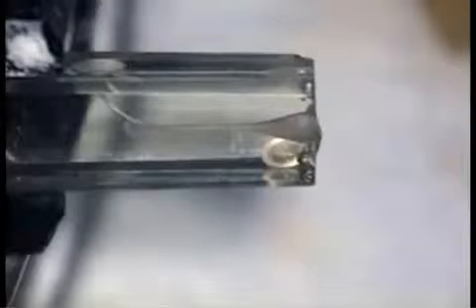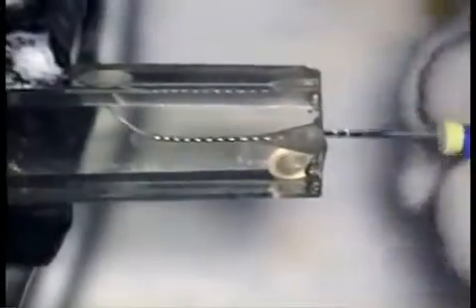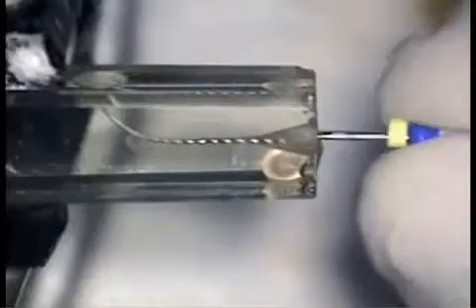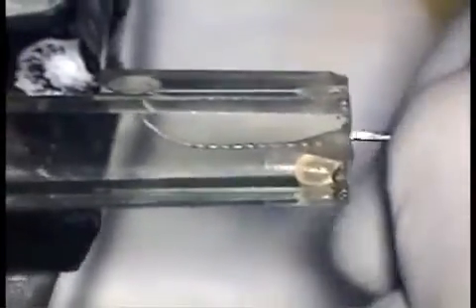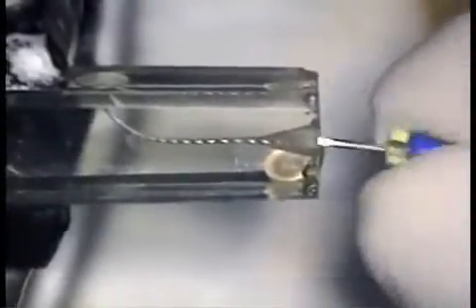The benefit of the reciprocating handpiece is the speed of its oscillations. Used at anywhere from 3,000 to 4,000 cycles per minute, each stroke removes very little dentin, but there are so many strokes per minute that from the dentist's perspective, the instrument shapes the canal quite rapidly, with the short stroke assuring the dentist of distortion-free shaping to both the instrument and the canal.